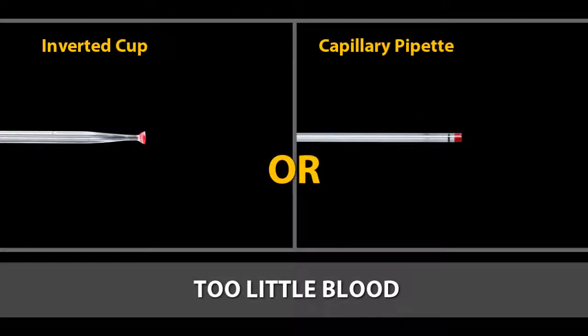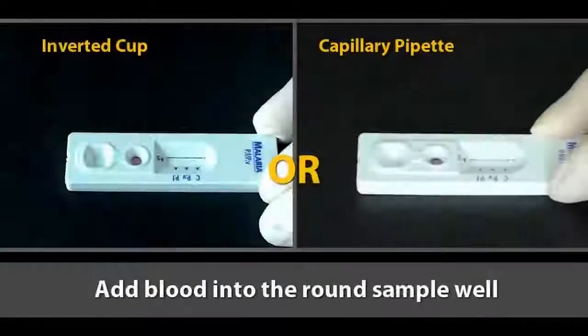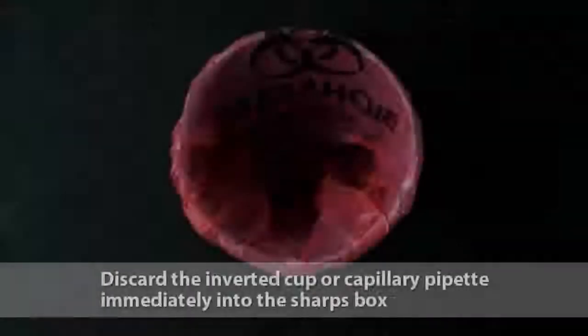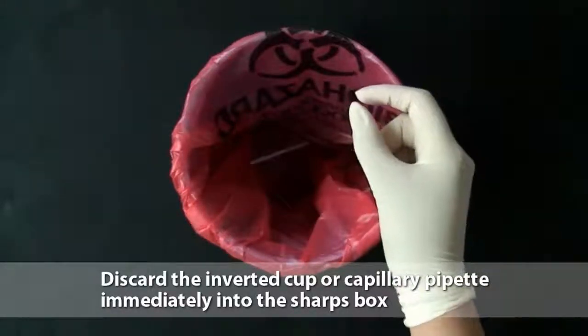It is too little. It is too much. Add 5 microliters of drawn blood into the round sample well, touching the sample pad. Discard the inverted cup or capillary pipette immediately in the sharps box.